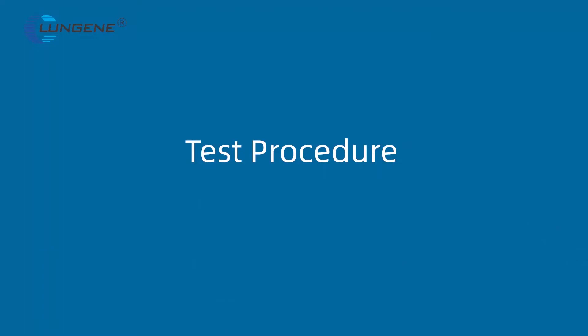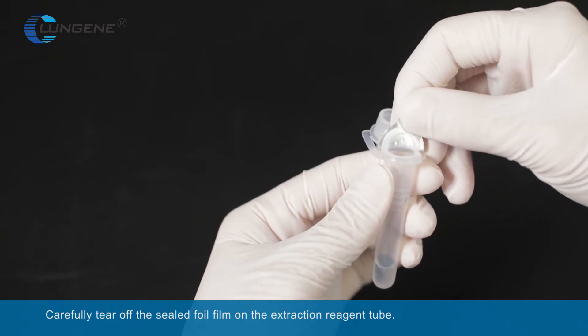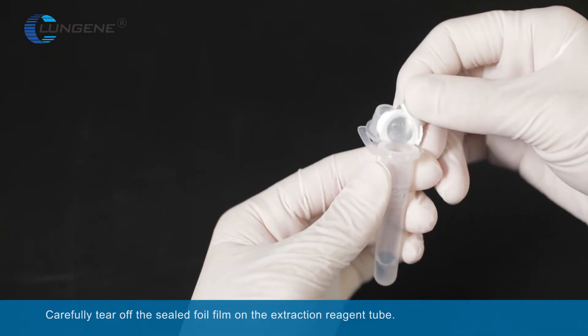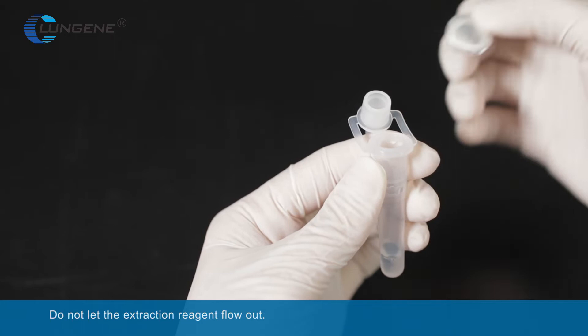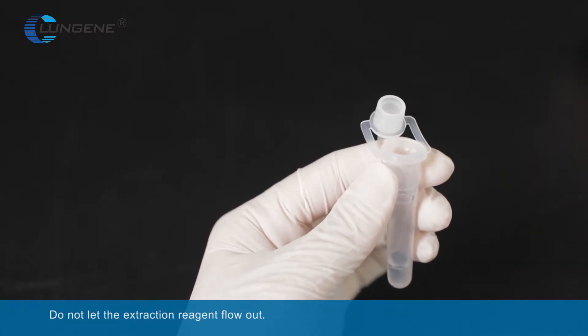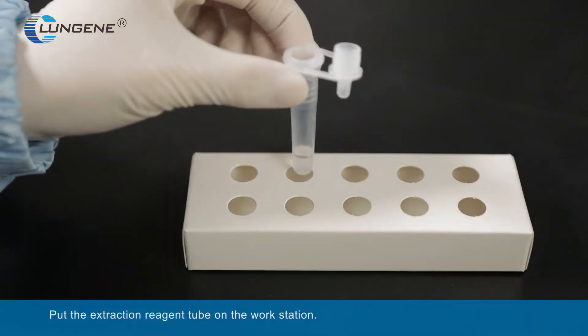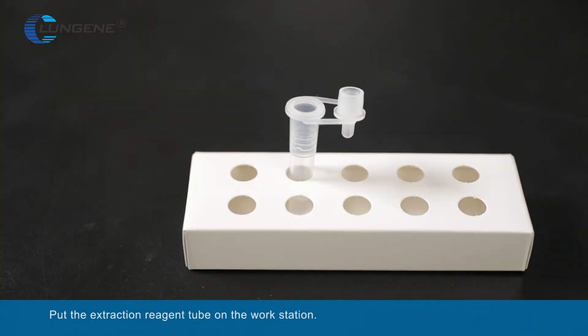Carefully tear off the sealed foil film on the extraction reagent tube. Do not let the extraction reagent flow out. Place the extraction reagent tube on the workstation.